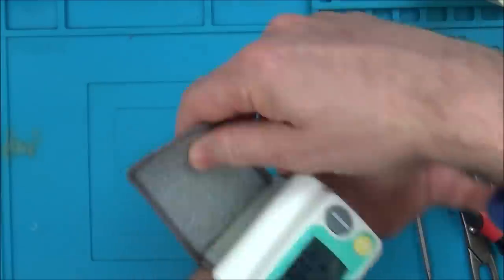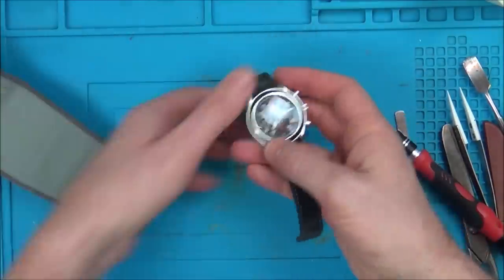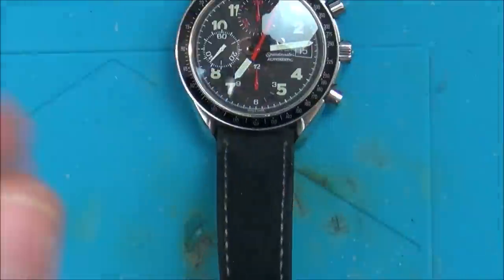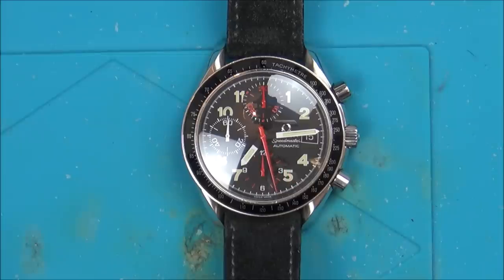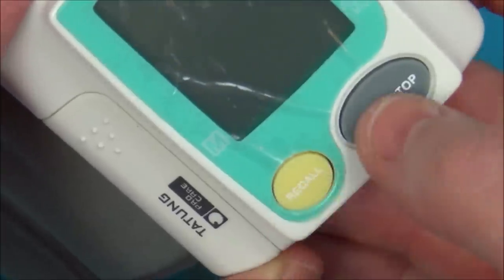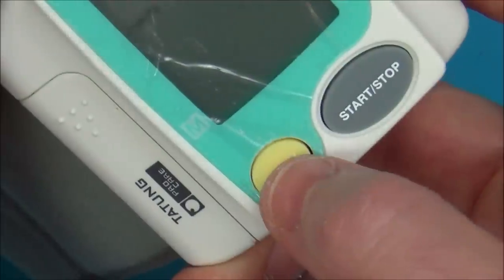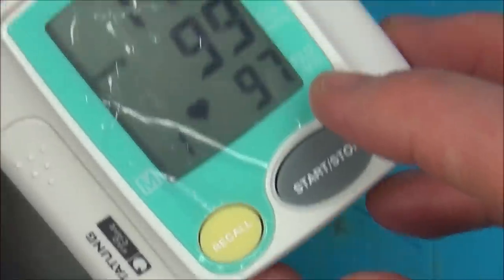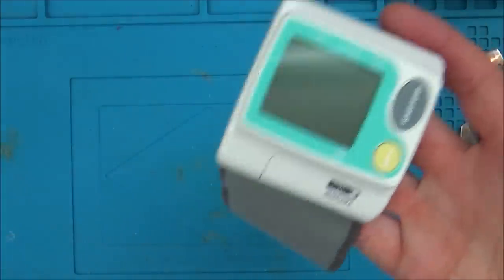Let me just check my pulse a minute just to see if it is that high. My pulse often does run high - that's why I'm more on the skinny side. I've just done 30 seconds and it was 47 beats. So 47 over 30 seconds is 94. So 97 wasn't really far out, was it? I'm going to stitch it up. I'll take another reading later on. I'm slightly out of breath at the moment. Ideally I should have my arm level with my chest, so I'll sit down properly later and do this.